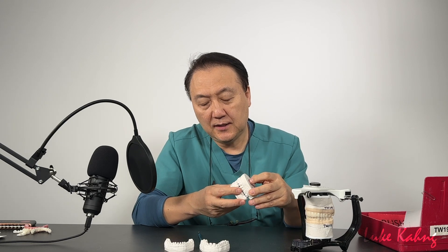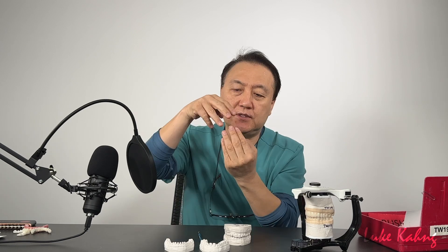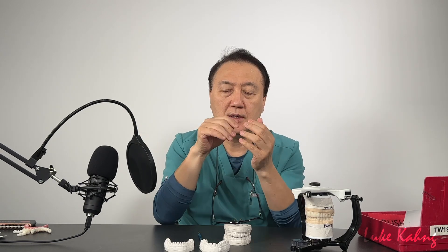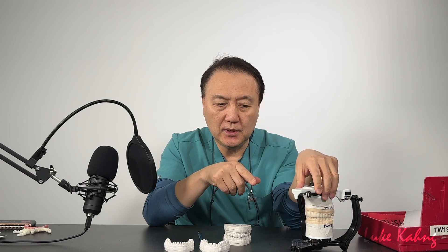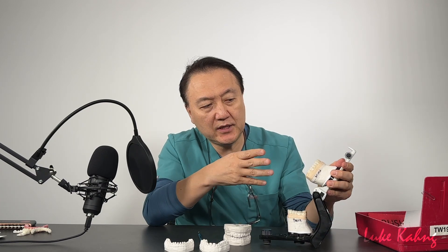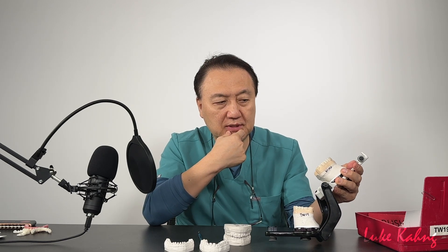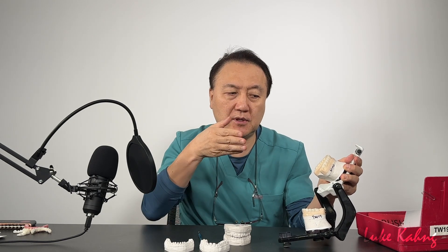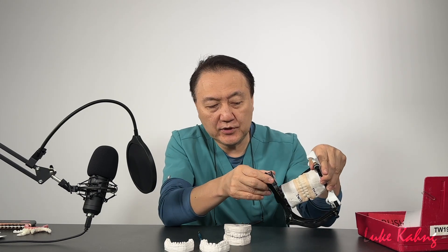I build from the lower 6 units first. After I finish the lower 6-unit alignment, I finish the top 6 units as well. This video is already prepped. The doctor wants veneers on the anteriors, but I notice that one canine is sticking out, so we have to cover a little more occlusion to get the occlusion contact — which means canine rise.